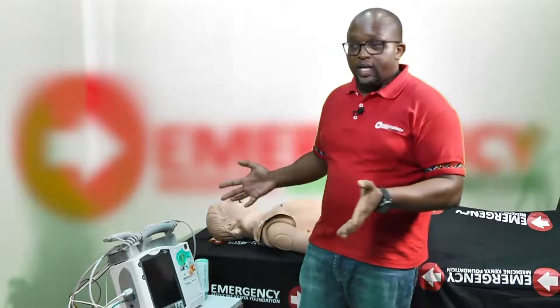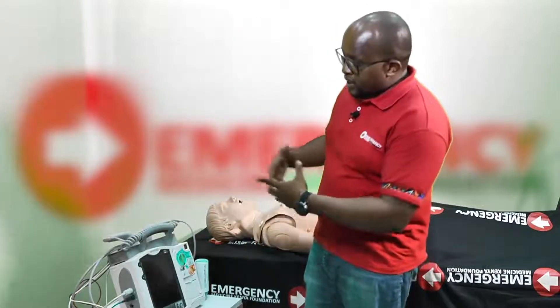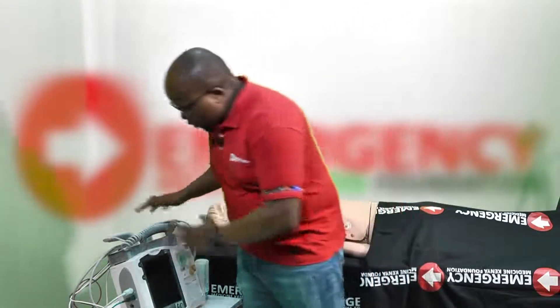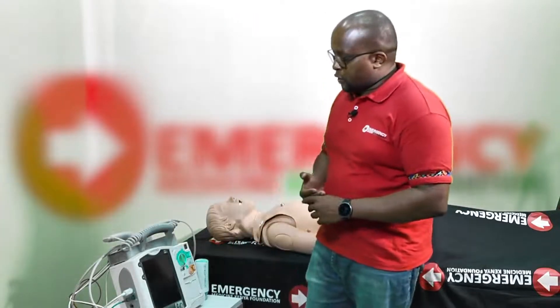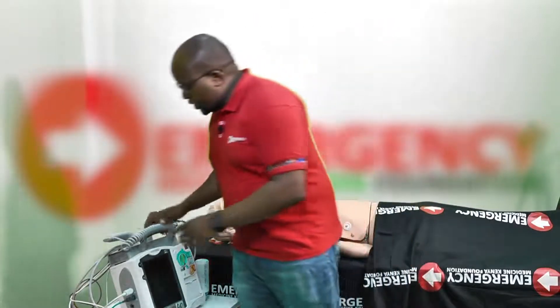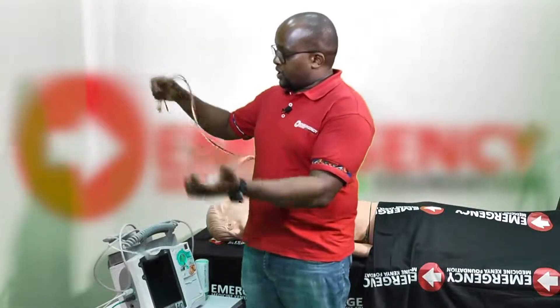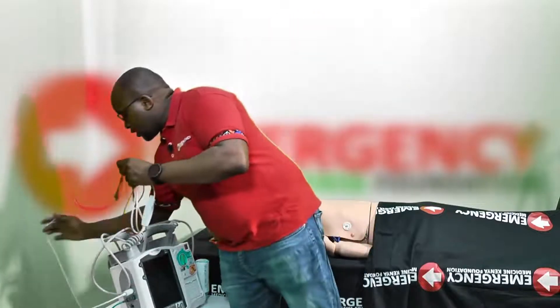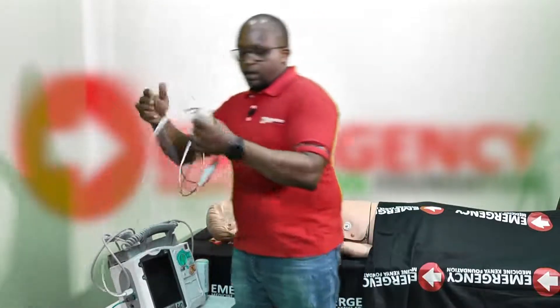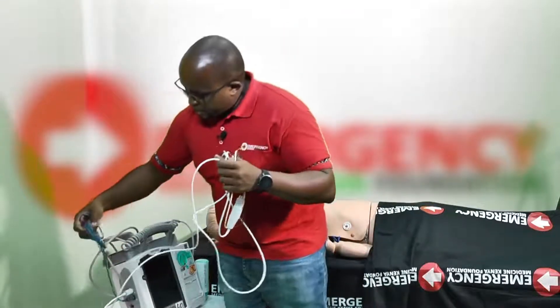The first part of checking a defibrillator is a physical inspection. You need to make sure there is nothing overlying it, no spills, it's not dirty or bloody for infection control reasons. Check all the cables to make sure they are intact and not broken, because a broken cable can cause an electrical short circuit.